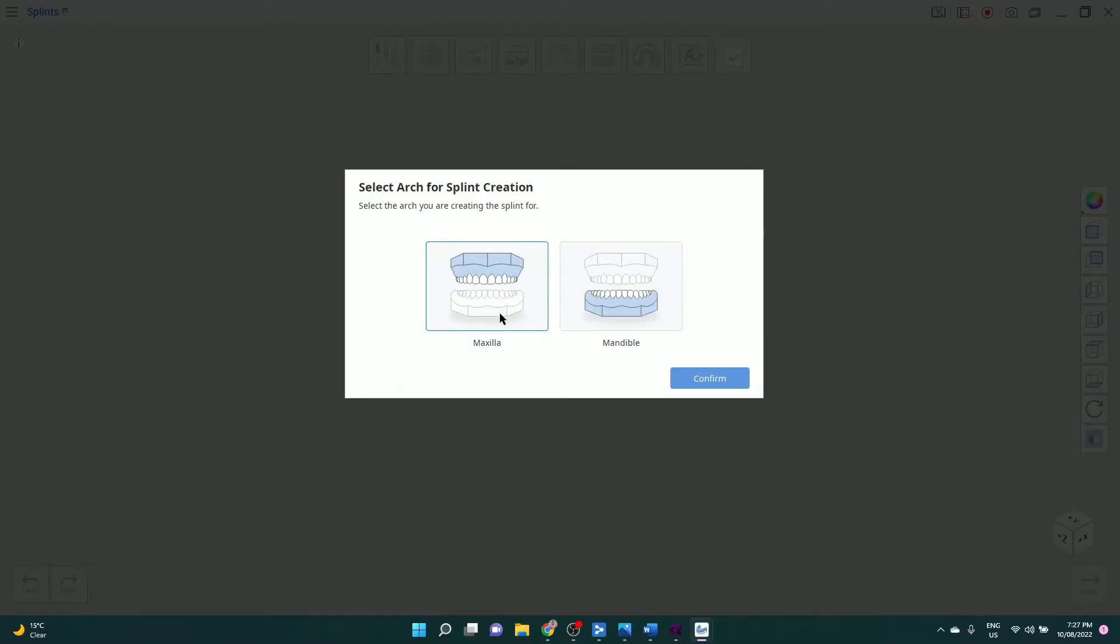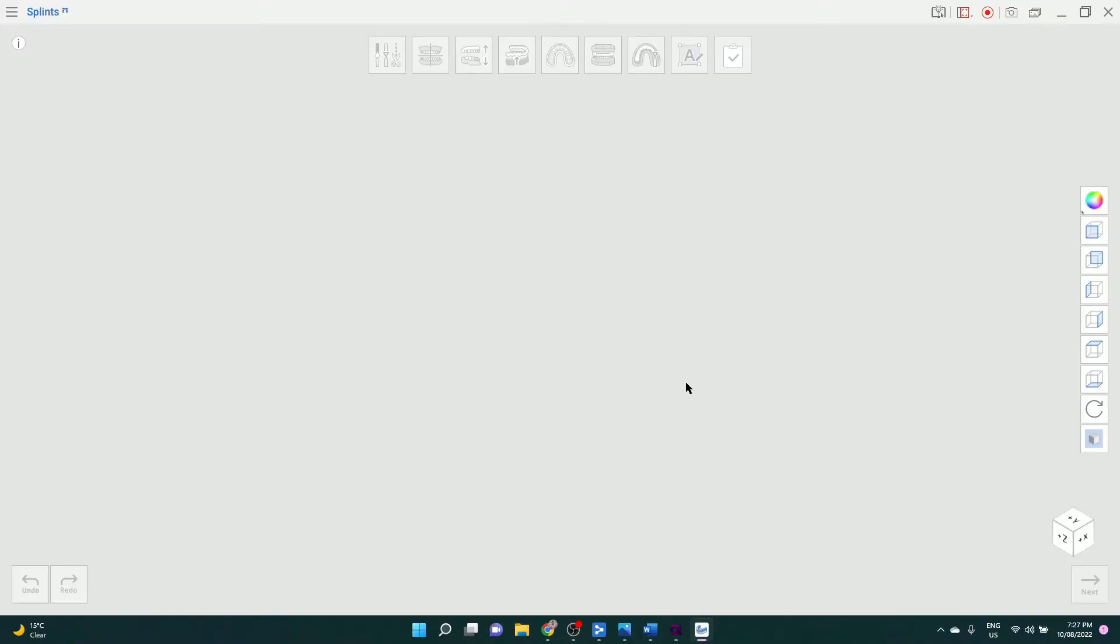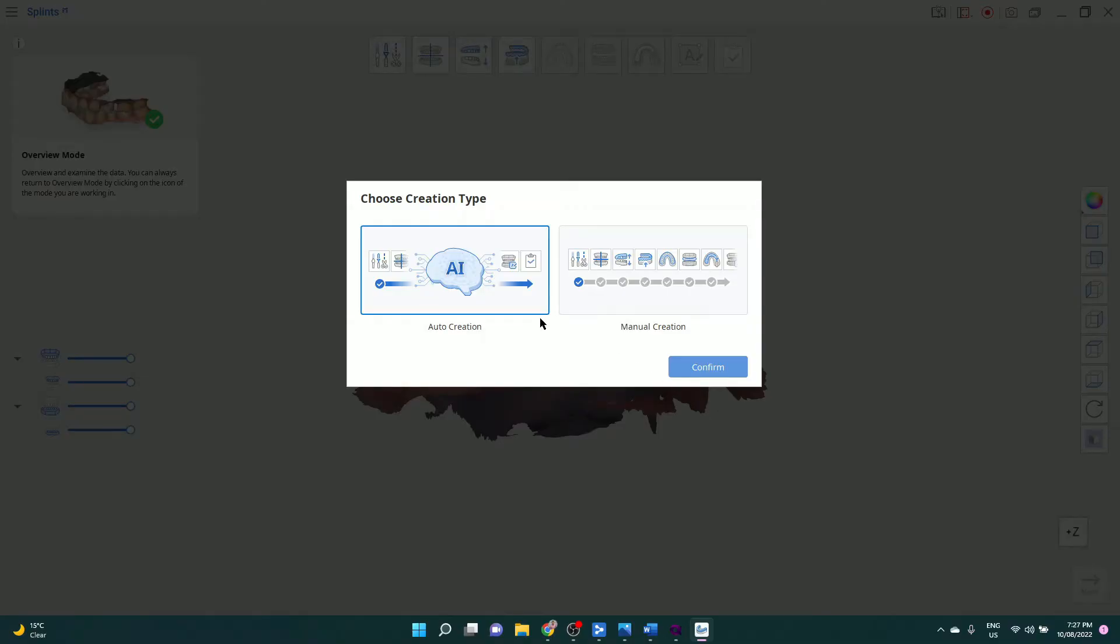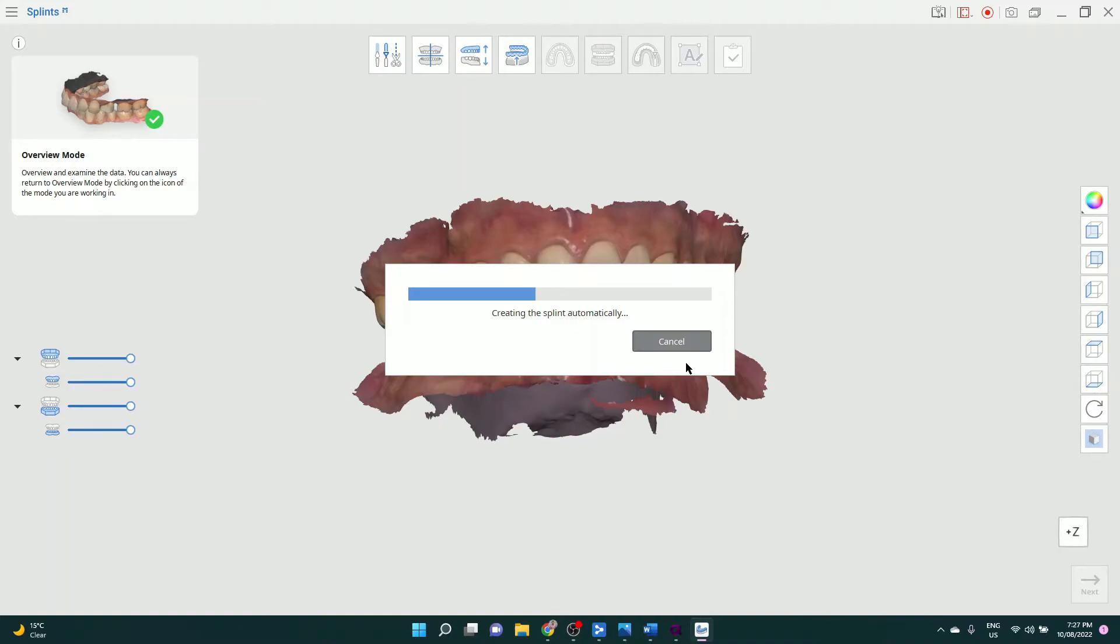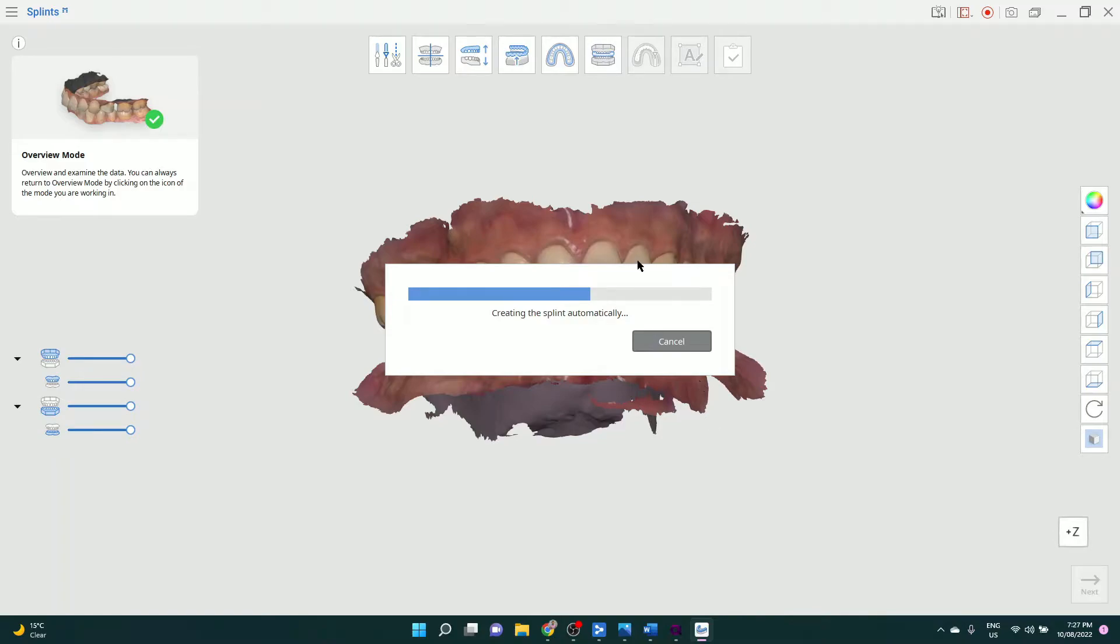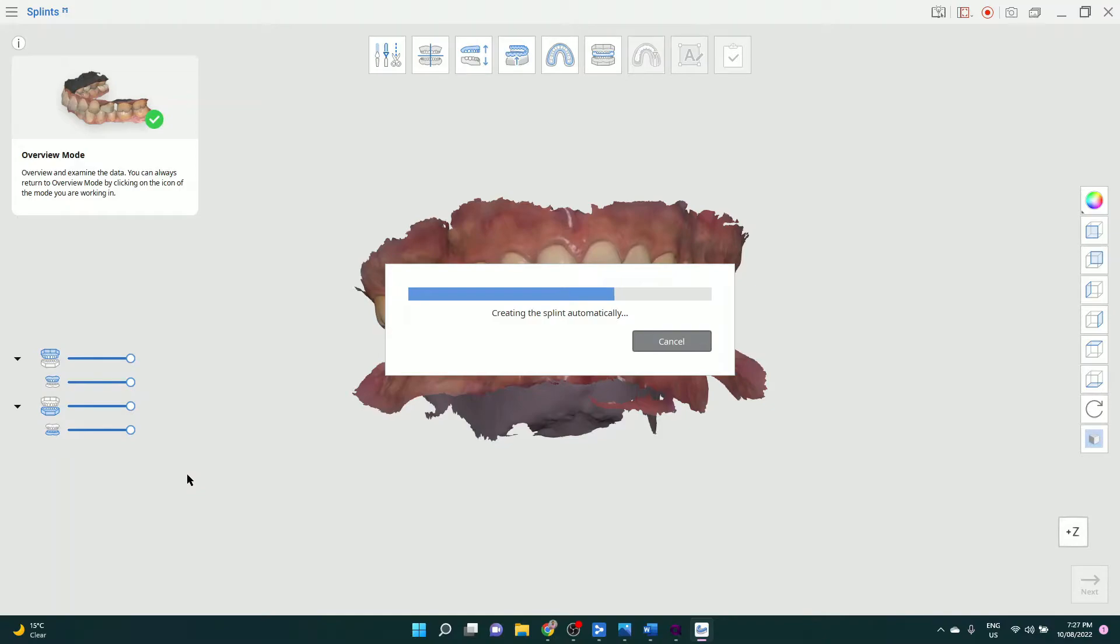So I want the splint to go on the maxilla, I want AI to do it. One button has created me a splint that I found today to actually work perfectly. So let me just run you through what that process looks like. One button - you will see in a second the upper and lower arches are separated in the bite registration, and that is by design. Now you'll allow the software to take up that space and create that AI splint.